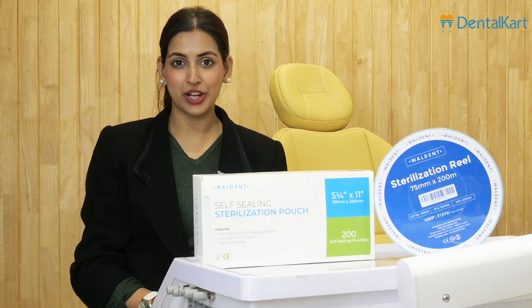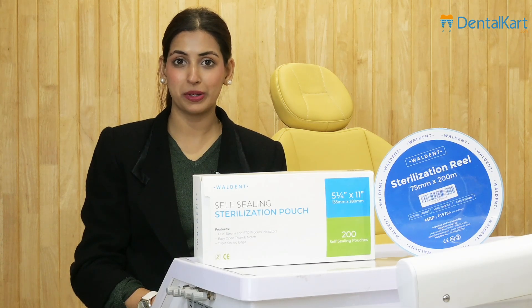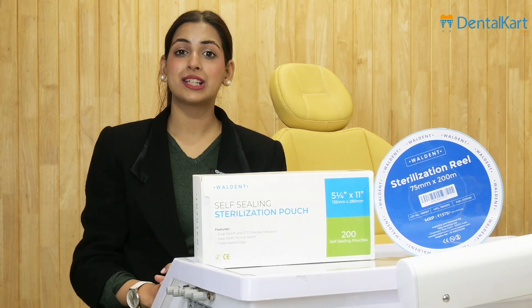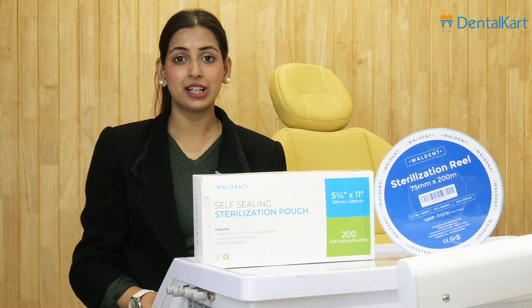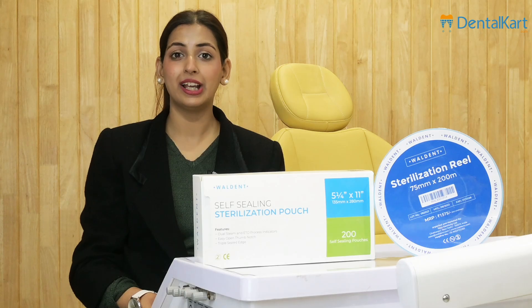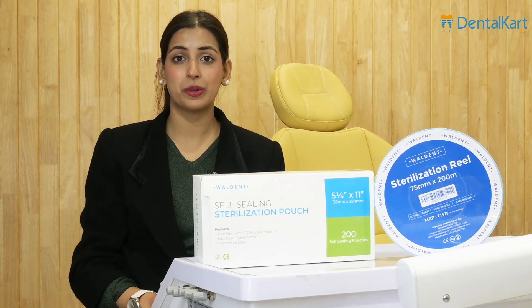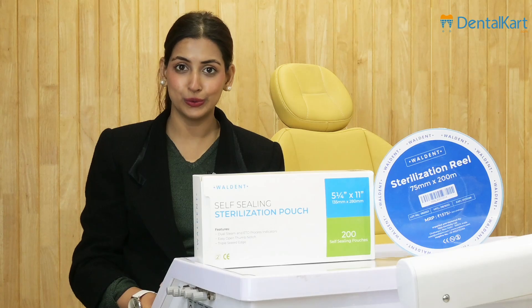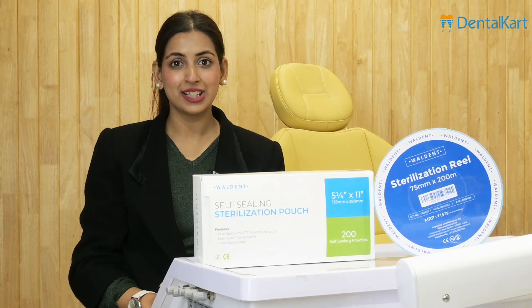Hello everyone, welcome to Dental Cart YouTube channel. I am Dr. Aisha and today we are going to discuss an important topic: sterilization CDC guidelines and how to achieve it. The CDC guideline for instrumentation is very clear — the instruments are divided into three parts: critical, semi-critical, and non-critical. The sterilization and segregation of the instruments has to be done accordingly. Segregating a large number of instruments on a daily basis is hard work, but there are two products that can really help you.